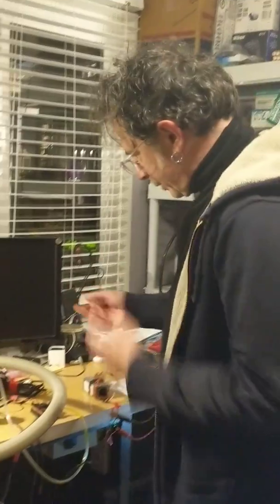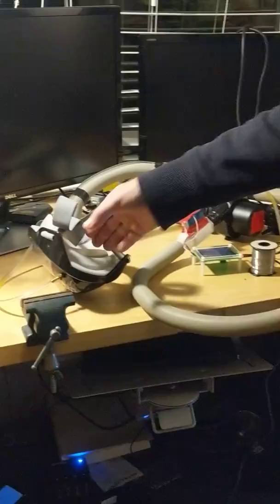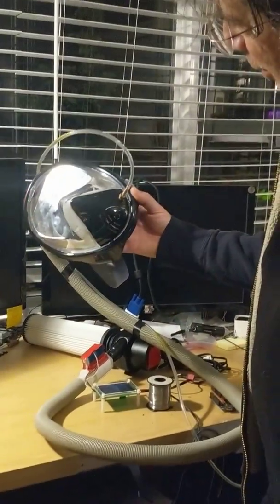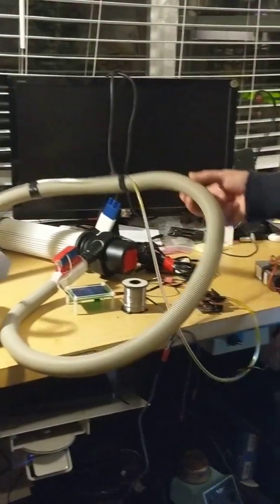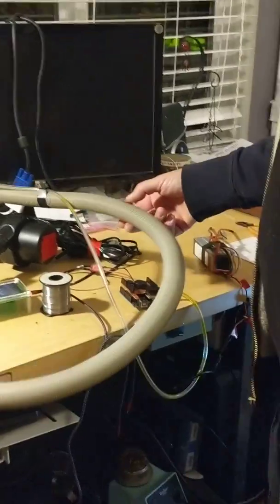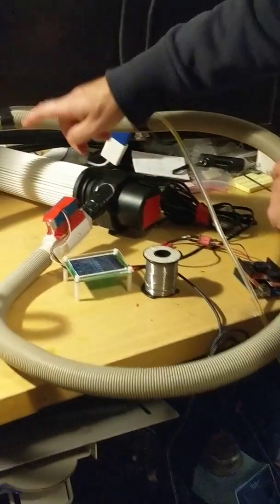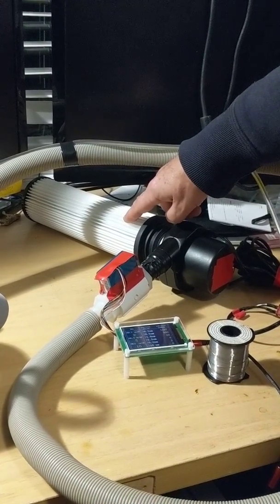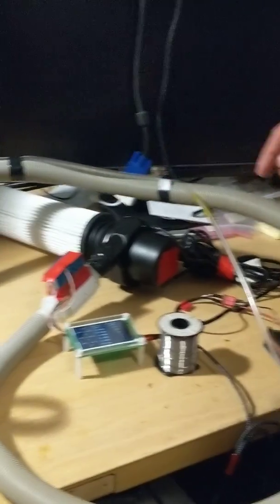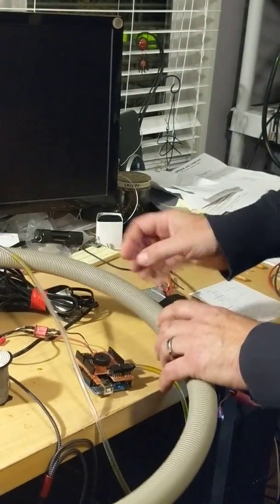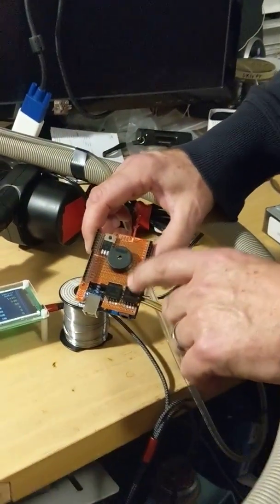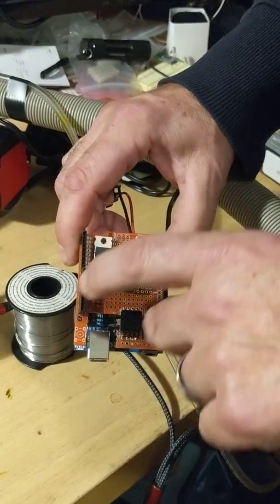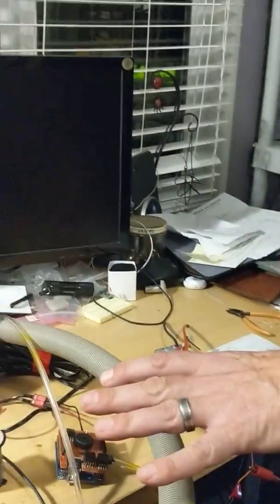So this is built for about $75 of pretty widely available hardware. This is your basic $20 snorkel helmet. This is a washing machine drain hose. This is an air mattress inflator. This is a $5 HEPA filter from a Hoover wind tunnel type vacuum cleaner. And there's a lithium polymer battery. And I made a little Arduino board with a pressure sensor, an alarm, and a FET for controlling the motor. So that's the basic layout.